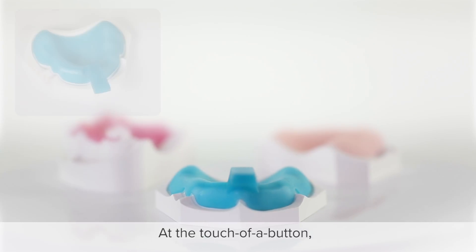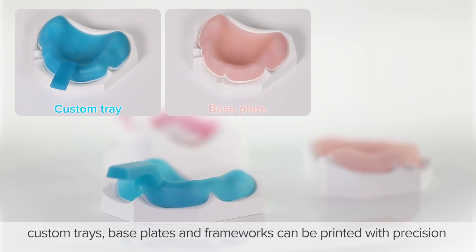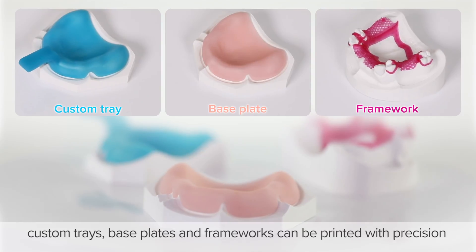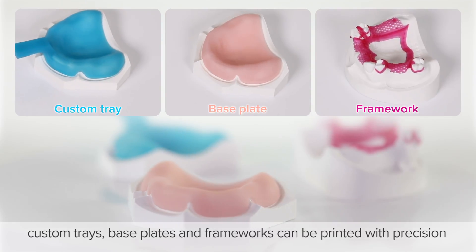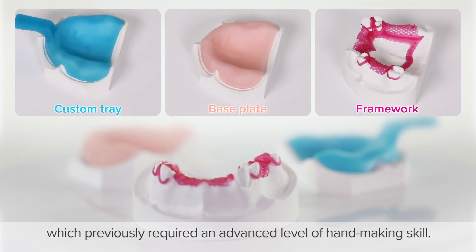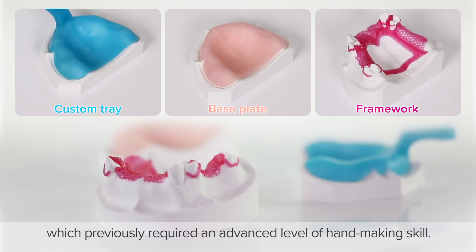At the touch of a button, custom trays, base plates and frameworks can be printed with precision, which previously required an advanced level of hand-making skill.